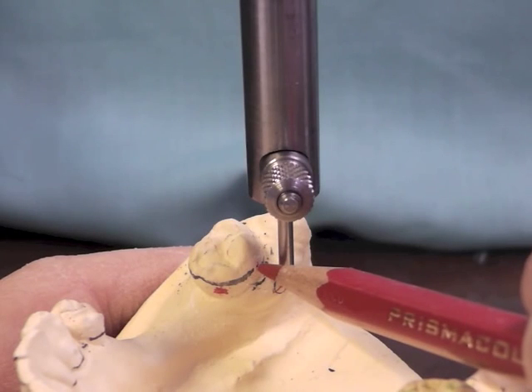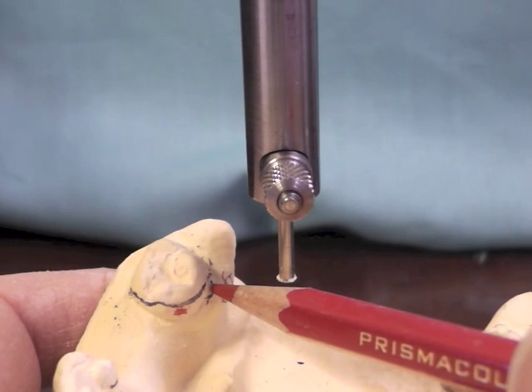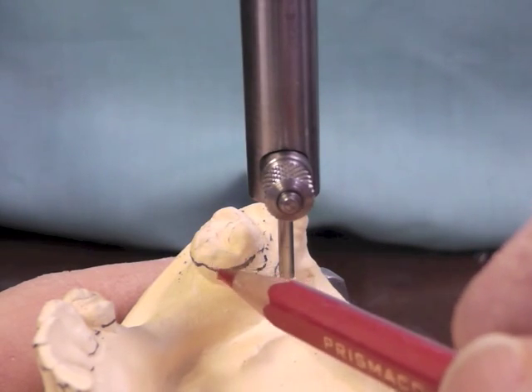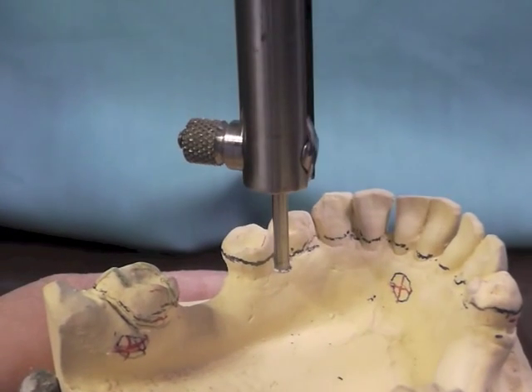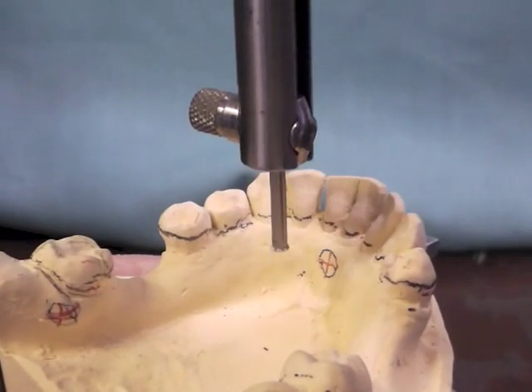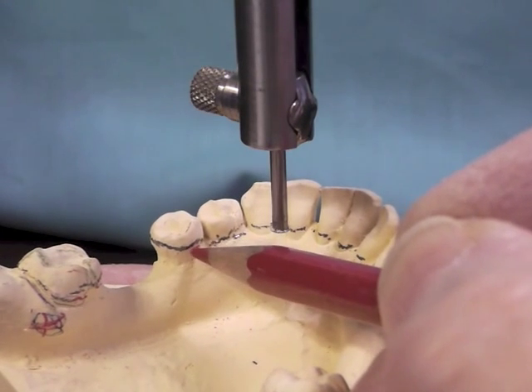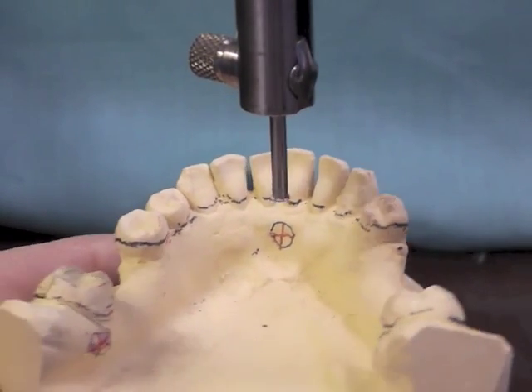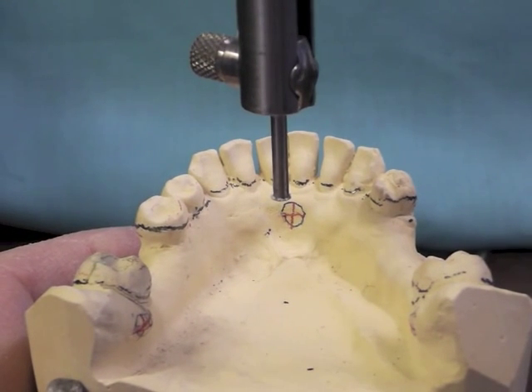You want it to be at the distal lingual. You get your flexibility from your clasp by having a long clasp. So I don't want an undercut at the mid-lingual surface — that would make a very short arm. We actually have a mesial lingual undercut on this side also. But again, we've got to think about balanced retention. It has to be buccal-buccal or lingual-lingual, but never buccal-buccal-lingual or that partial will dislodge itself. We're now ready to make some decisions on our designs. We have a lot of options.